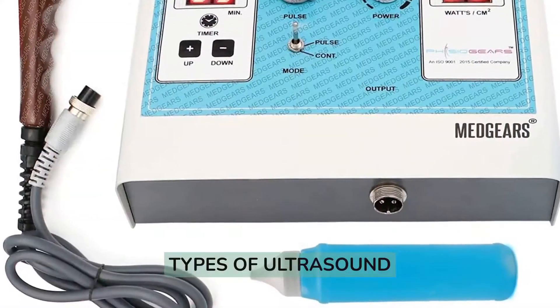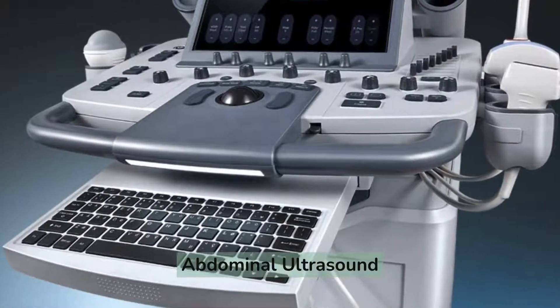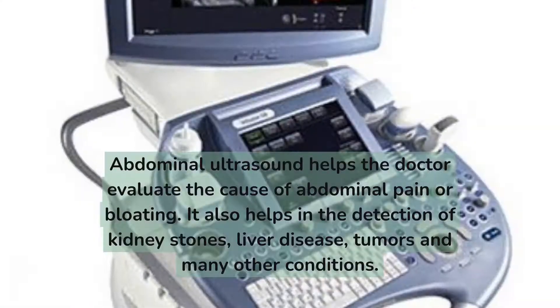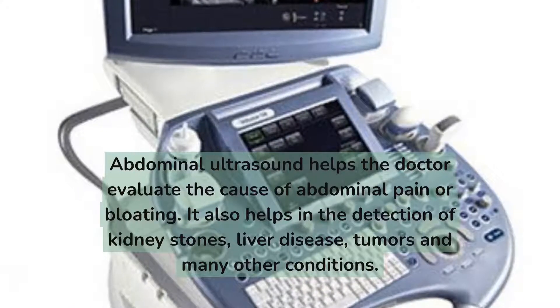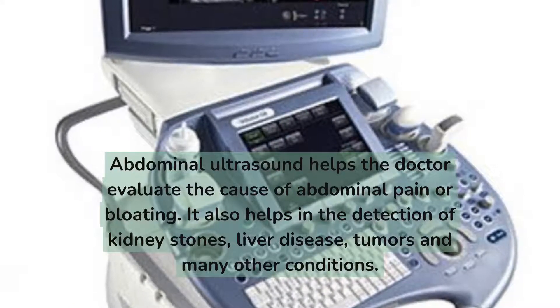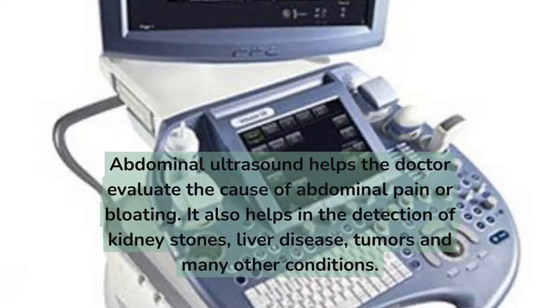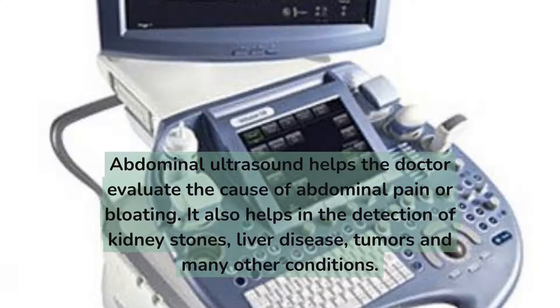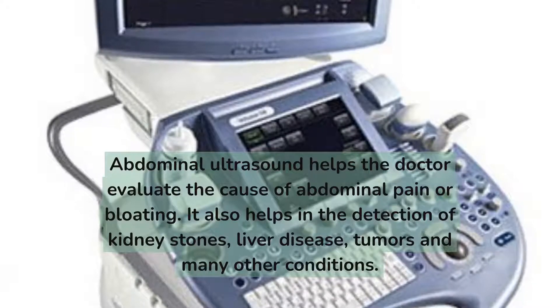Types of ultrasound. Abdominal ultrasound. Abdominal ultrasound helps the doctor evaluate the cause of abdominal pain or bloating. It also helps in the detection of kidney stones, liver disease, tumors, and many other conditions.